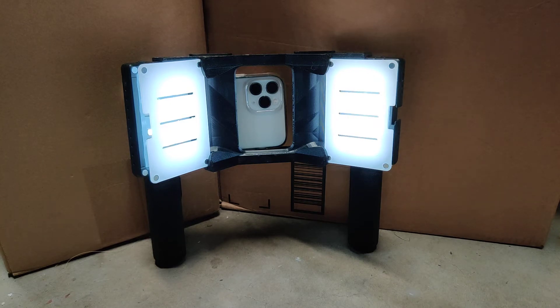There are a couple different things about the design that I thought warranted a patent, and also that differentiate my product from the competition. The first are the two diffusers. All three products have dual flat-plane lighting sources, but the Photomed SDB most notably lacks an offset diffuser option.